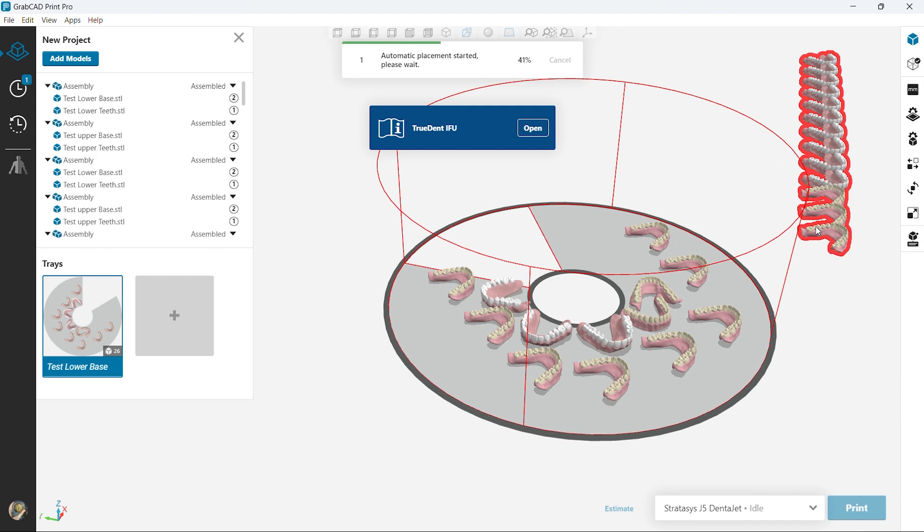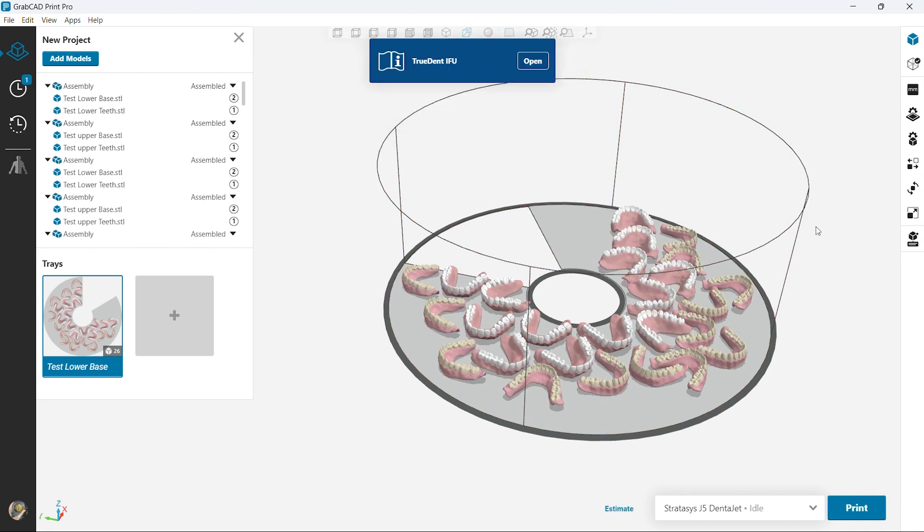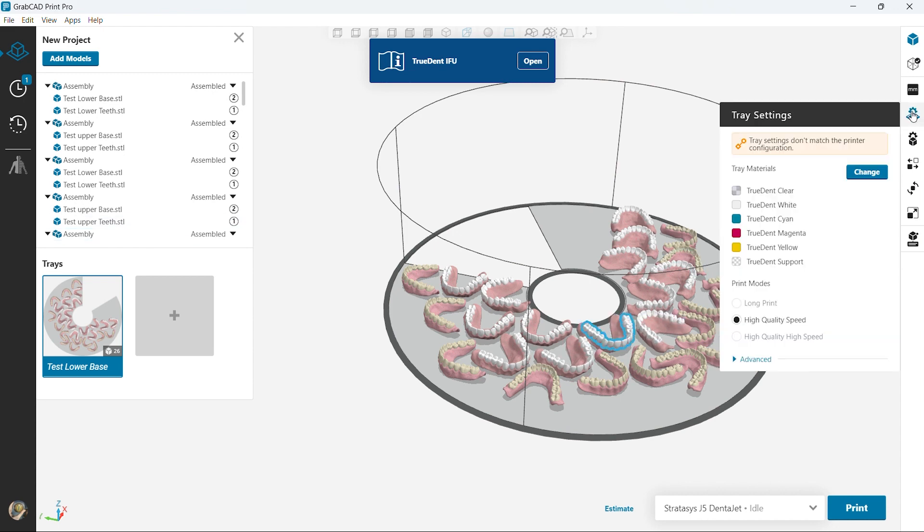You can play with the different teeth shades, you can change the gingiva color, all on one print. Okay so here's a hypothetical example. Right now we have the 13 cases on there. There's plenty of extra space. We could probably fit another five on there easily.